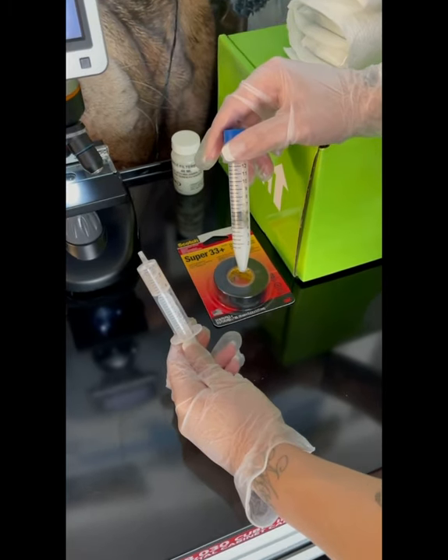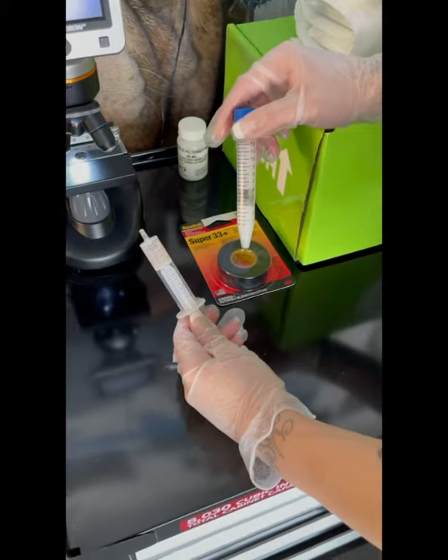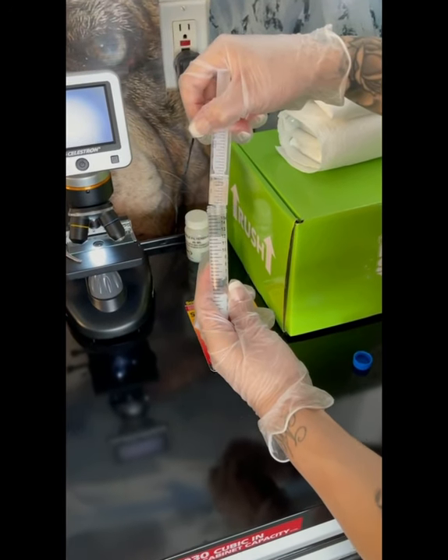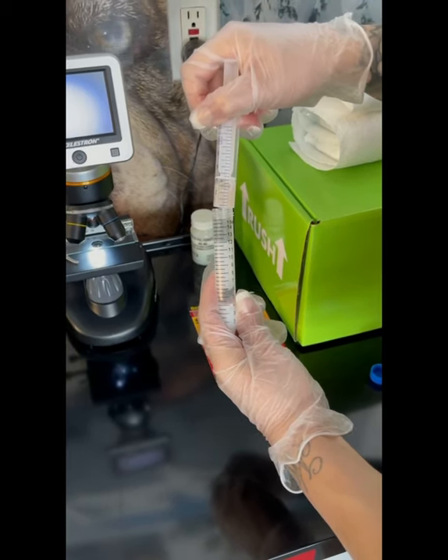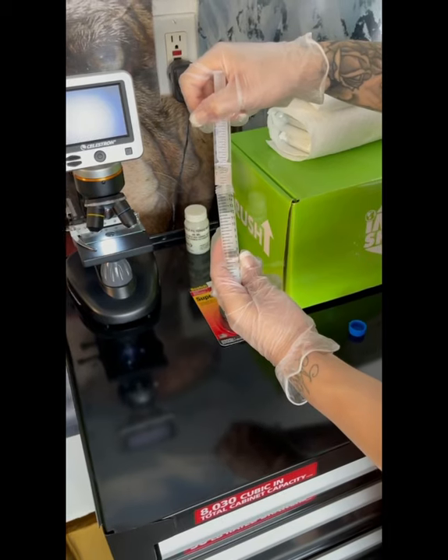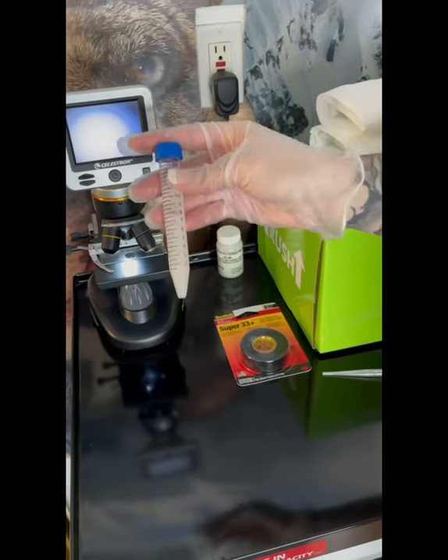We take usually about 4 mLs of extender. We prepared it by bringing it to 98 degrees body temperature. Now we're going to introduce the semen into the extender. Very important — you don't squeeze it all in at once as you don't want to shock the semen. Once you have both components in the vial, you're going to slowly mix it around.